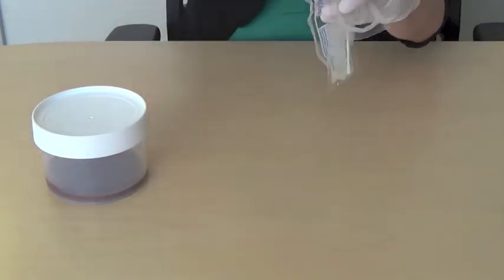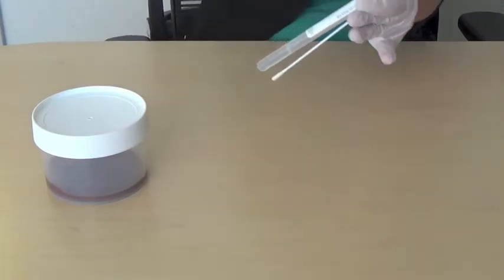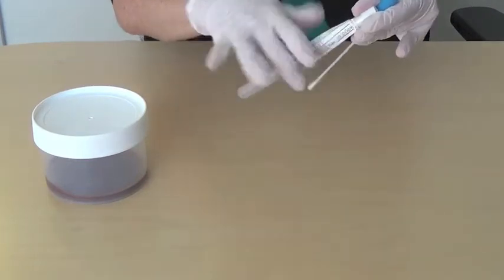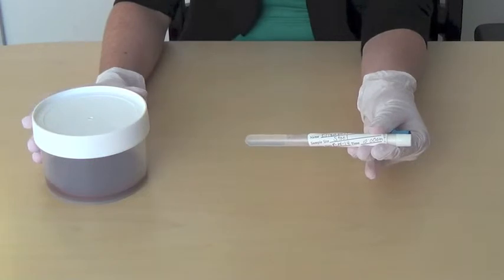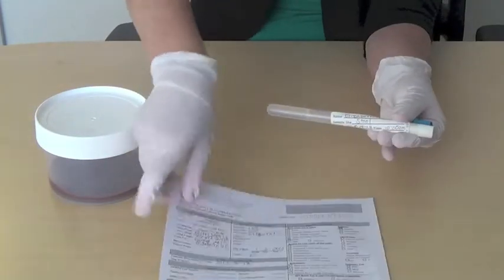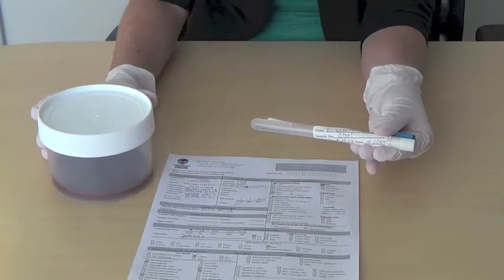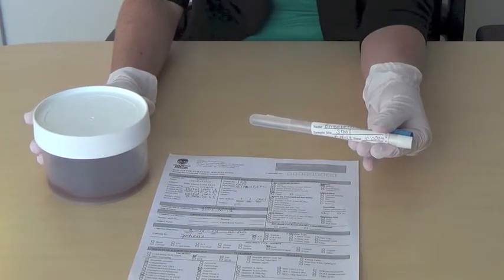First, before transferring the stool into the tube, make sure the label on the tube is filled out with the case's name, specimen type, and collection date. Fill out the CDPHE Test Requisition Form 270, and remember you will need a separate form for each specimen, even if multiple specimens came from one patient.